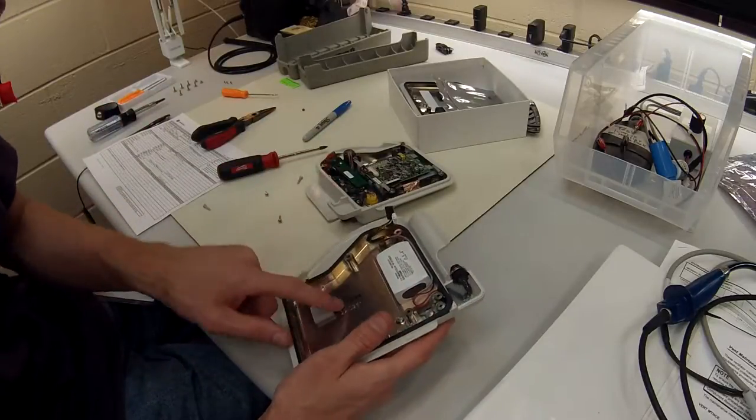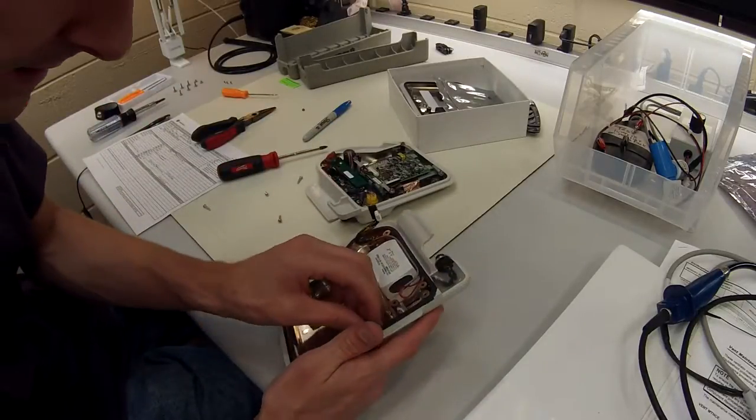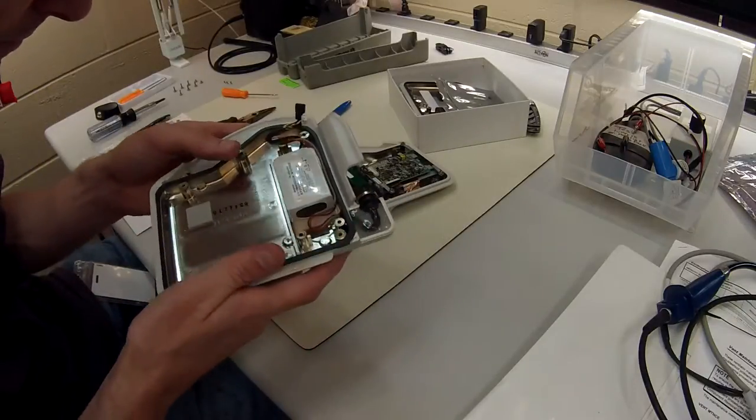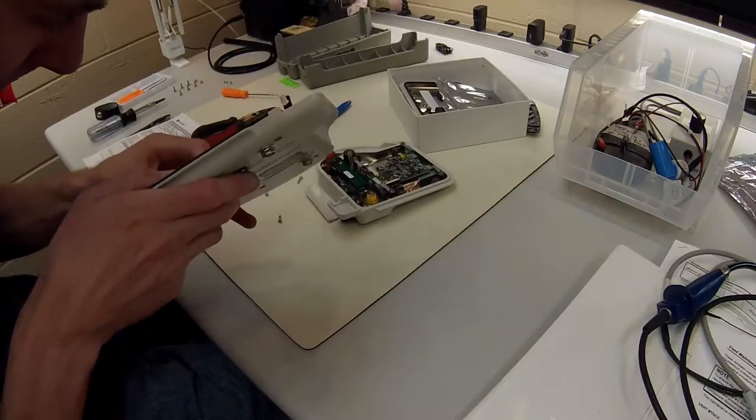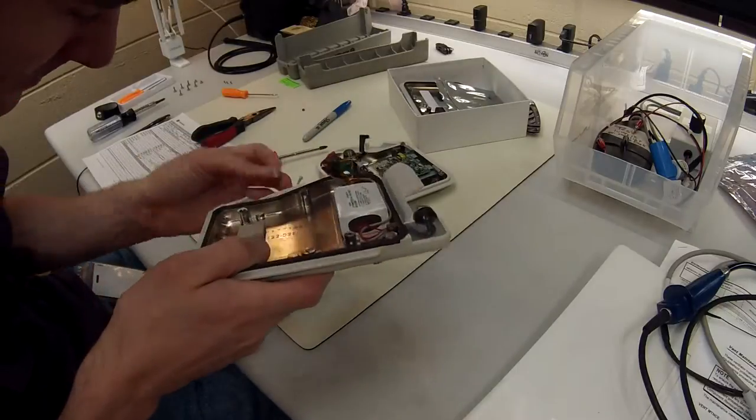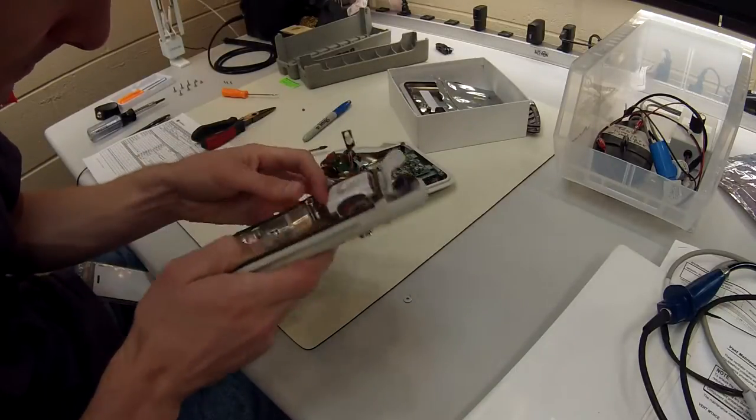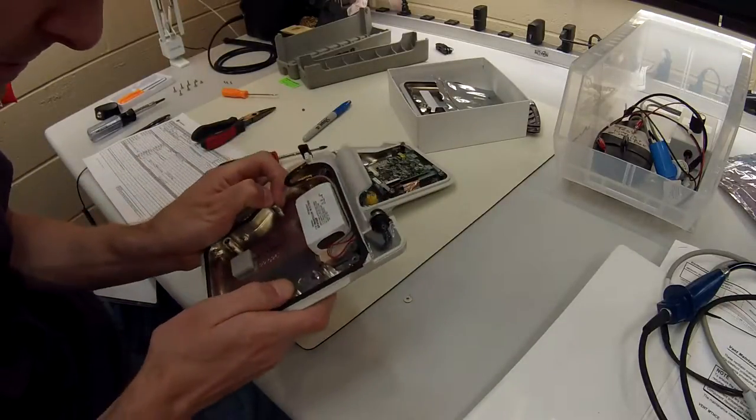We've been keeping the back ends if there's good back ends without very many broken screw posts, then we'll keep them. This one is not looking too hot, so unfortunately we're going to have to throw this one away too.